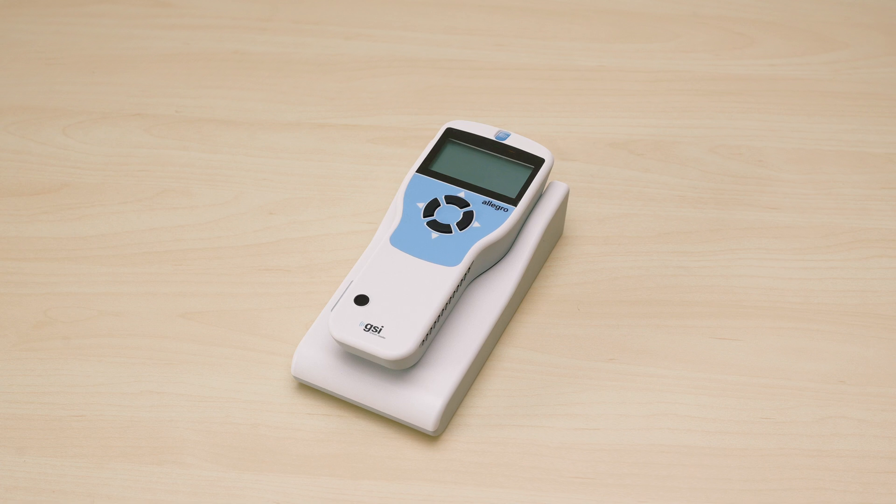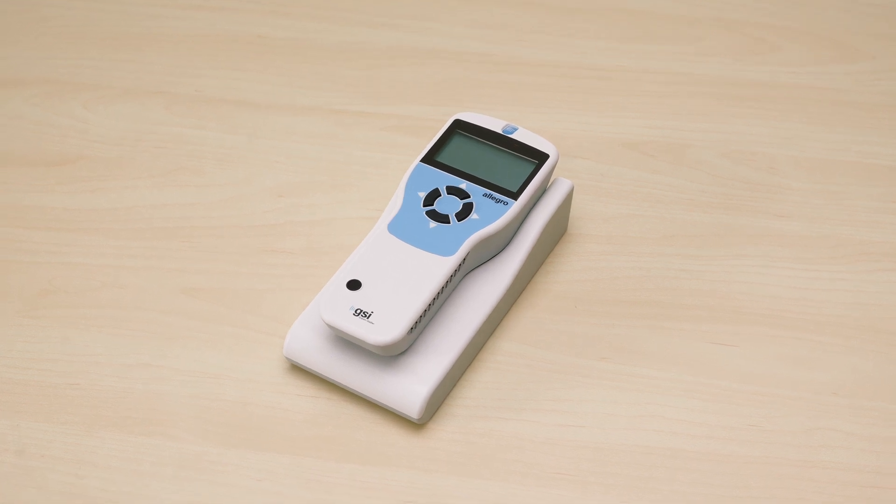Thank you for taking the time to watch the Allegro tutorial. The GSI Allegro is a multi-function screening device that offers tympanometry and reflex screening. The Allegro includes everything needed to perform testing and manage patient data.